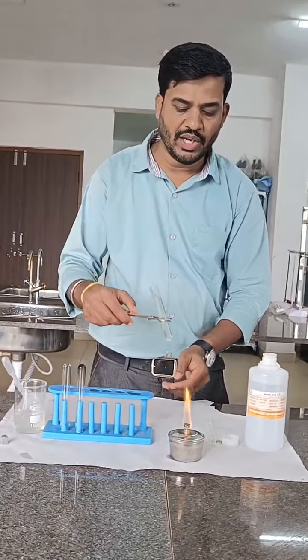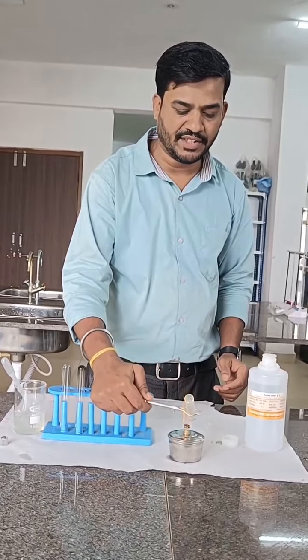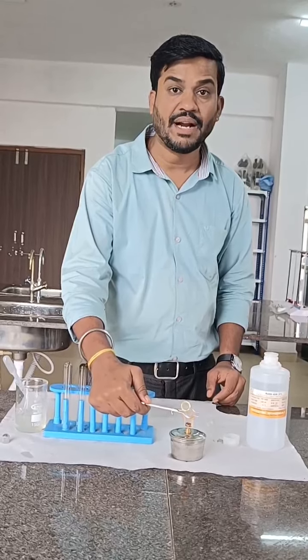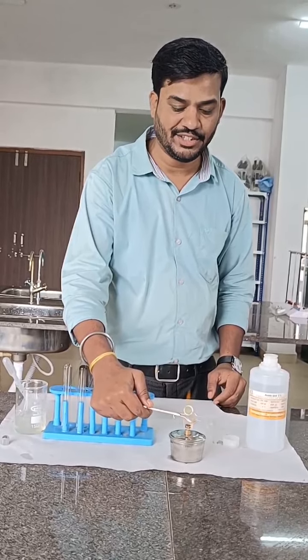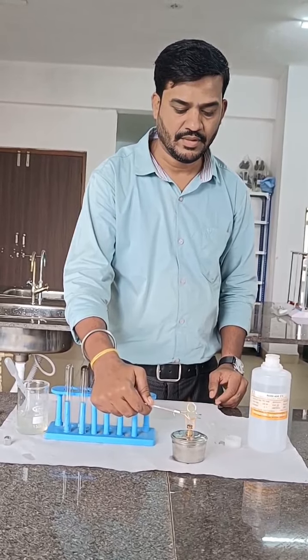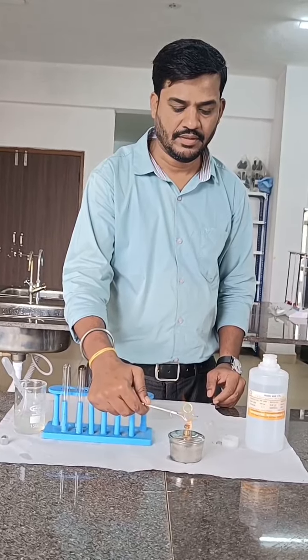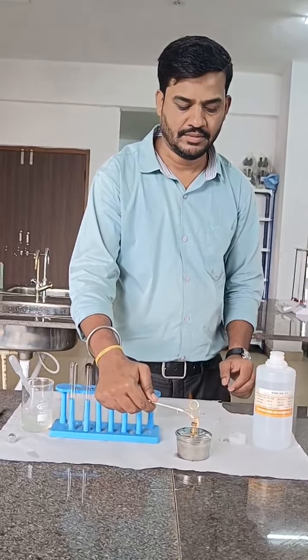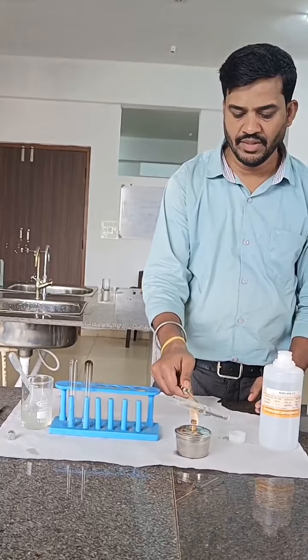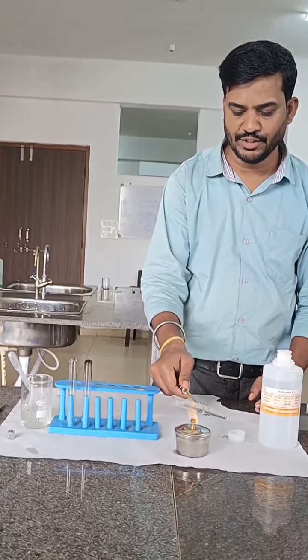After adding three-fourths volume of urine, first what we need to do is heat the upper part of the test tube. Now I am heating the upper part of the test tube.